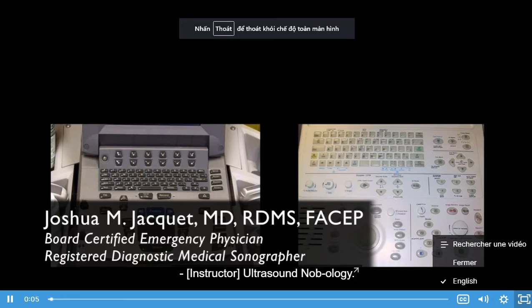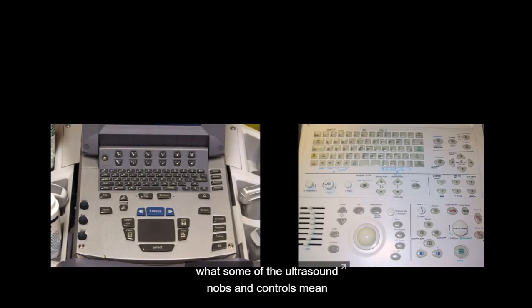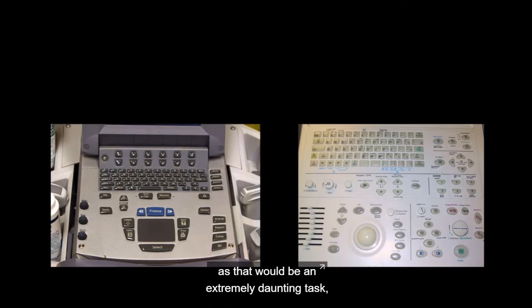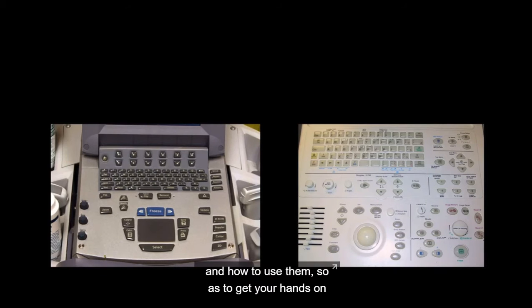Ultrasound knobology. Well, now we get to dive into what some of the ultrasound knobs and controls mean and how to use them. And while my goal here is not to do a comprehensive review of all the possible knobs and controls on all of the possible ultrasound systems, as that would be an extremely daunting task, I do want to provide you with a foundation of what are the most common controls and the most important controls and how to use them, so as to get your hands on the ultrasound machine to start using them.